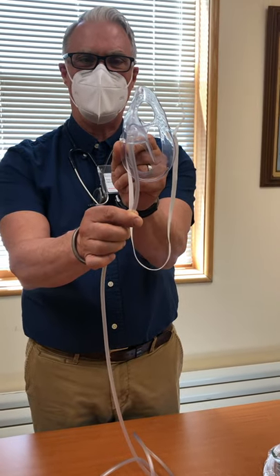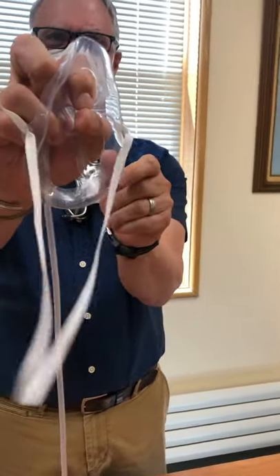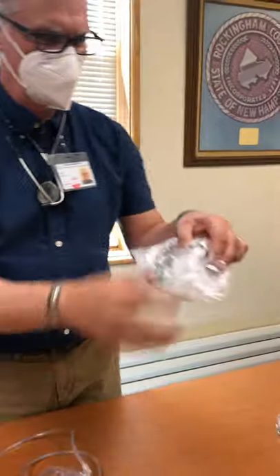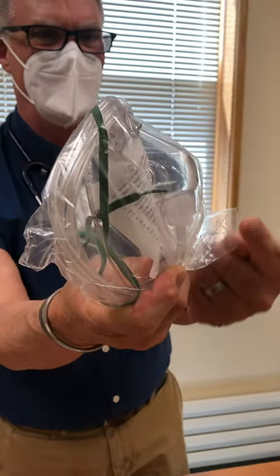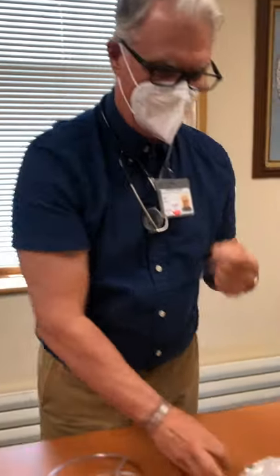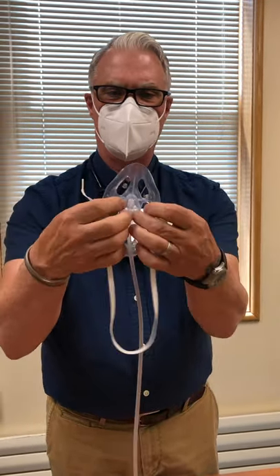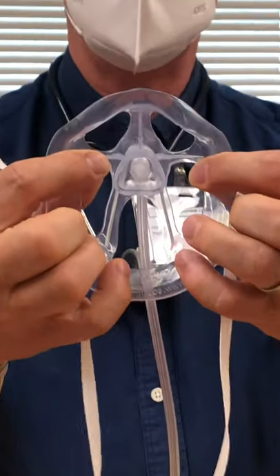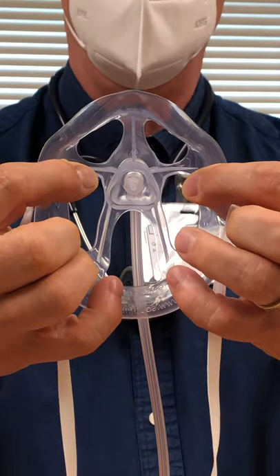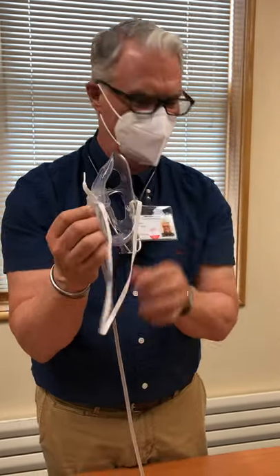It's called the OxyMask — O-X-Y-M-A-S-K. You look at it and say, how does that work? It's all wide open in there. Well, if you look at your simple oxygen mask, the oxygen is blowing right up above your nose, at the bridge of your nose — and you don't breathe there. So this company realized: let's bring it in at a right angle, with a raised area and a little button in the center. That creates what they call a vortex of oxygen, so the oxygen swirls around right in front of the patient's mouth and nose where they need it.